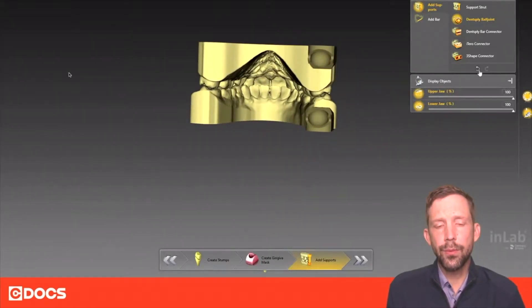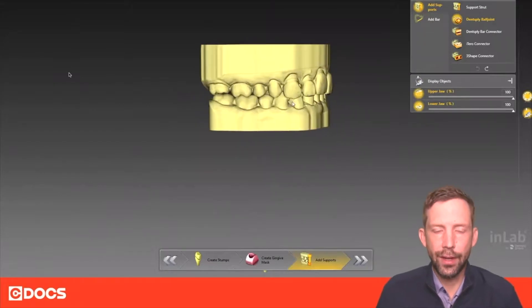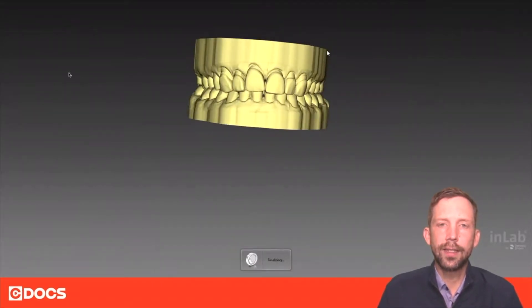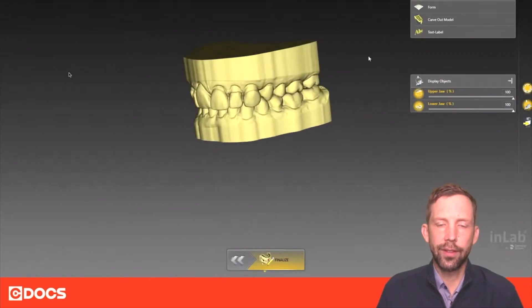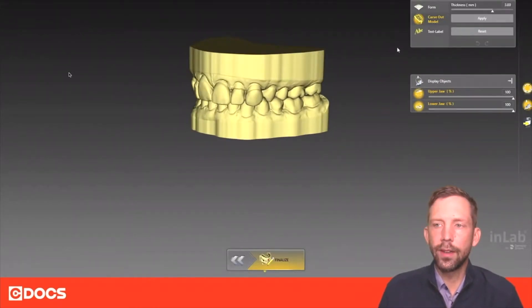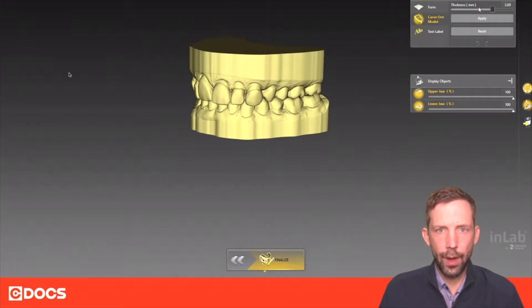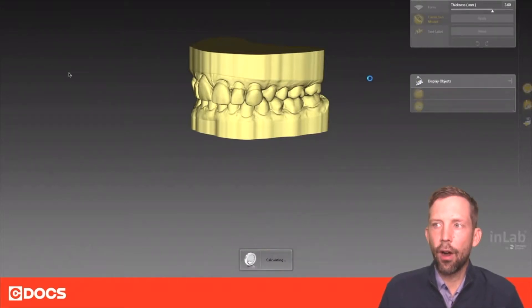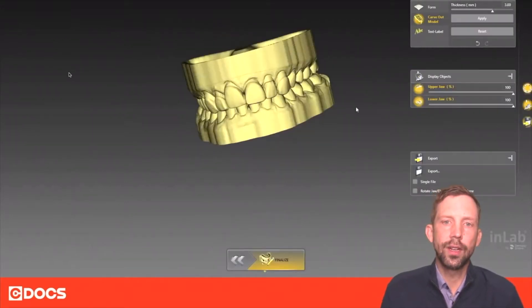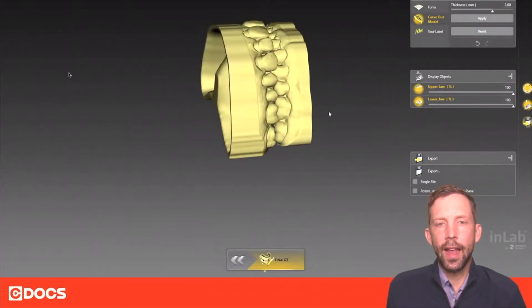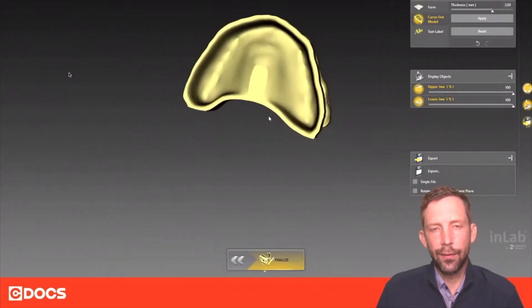As we move forward into the final manufacturing phase, I want to show you one last step you can do, which is to hollow out the models very easily with one simple button. You can see up at the top we have a carve out option — we can just apply it, show how much we want to carve out, and you can do this to save a little resin.